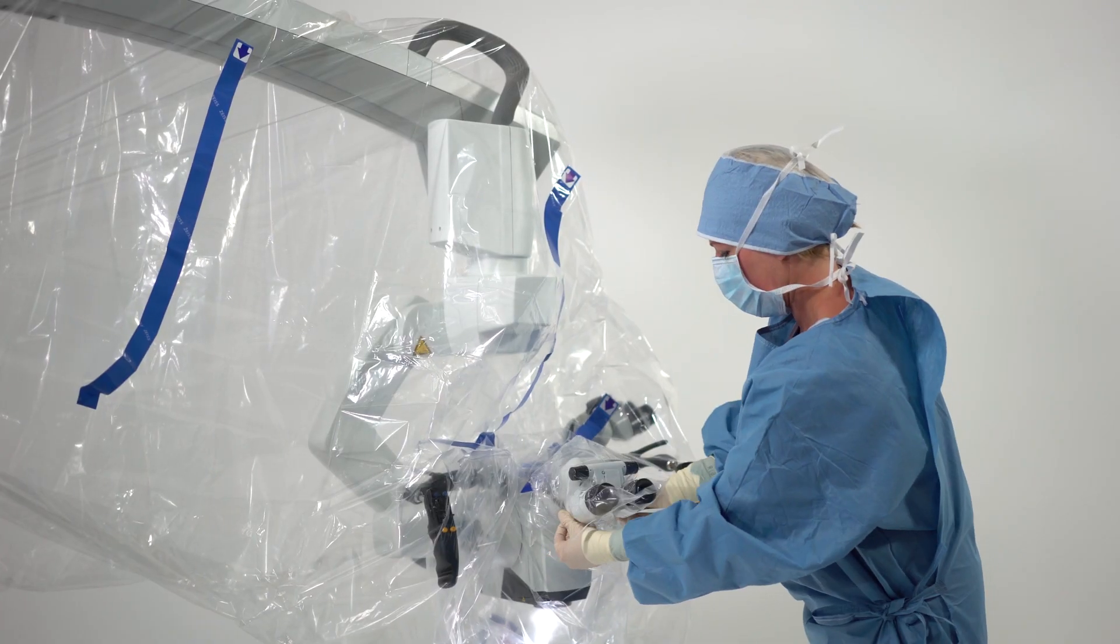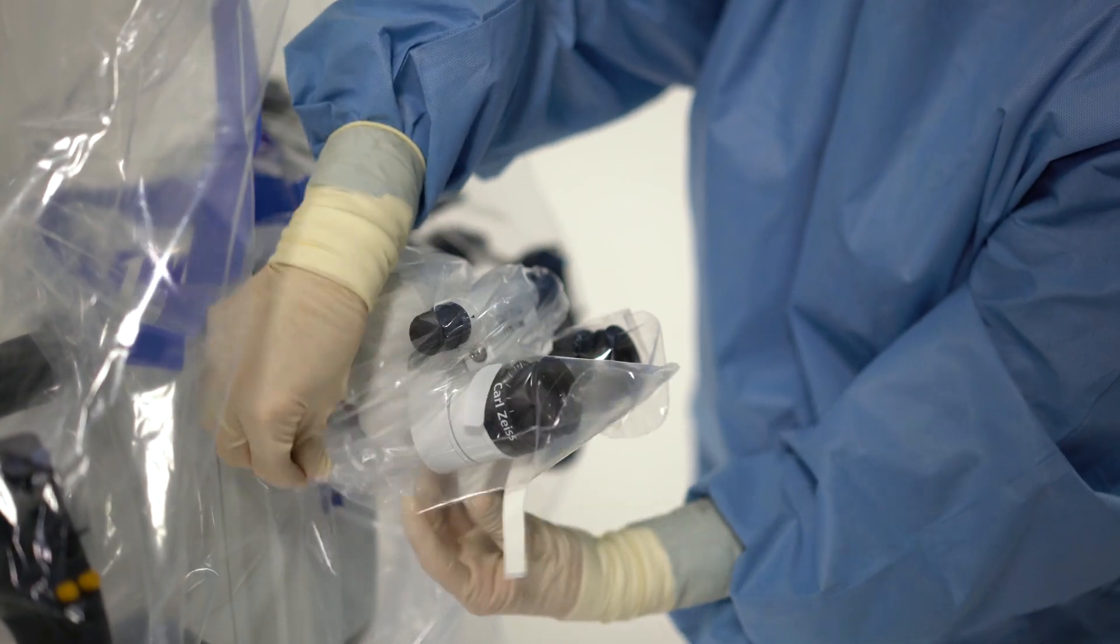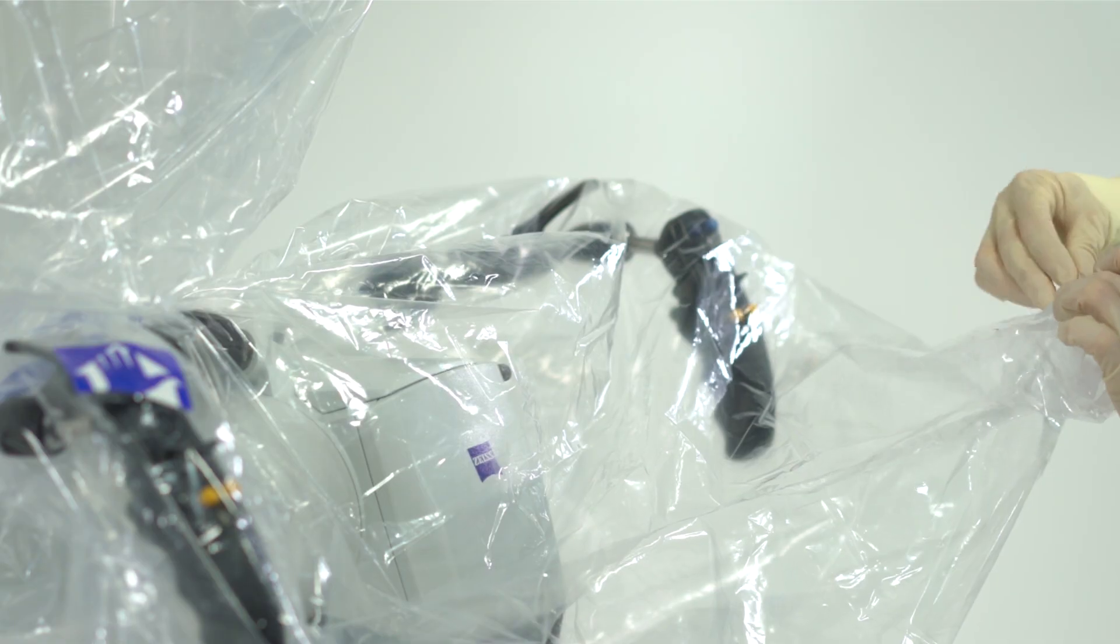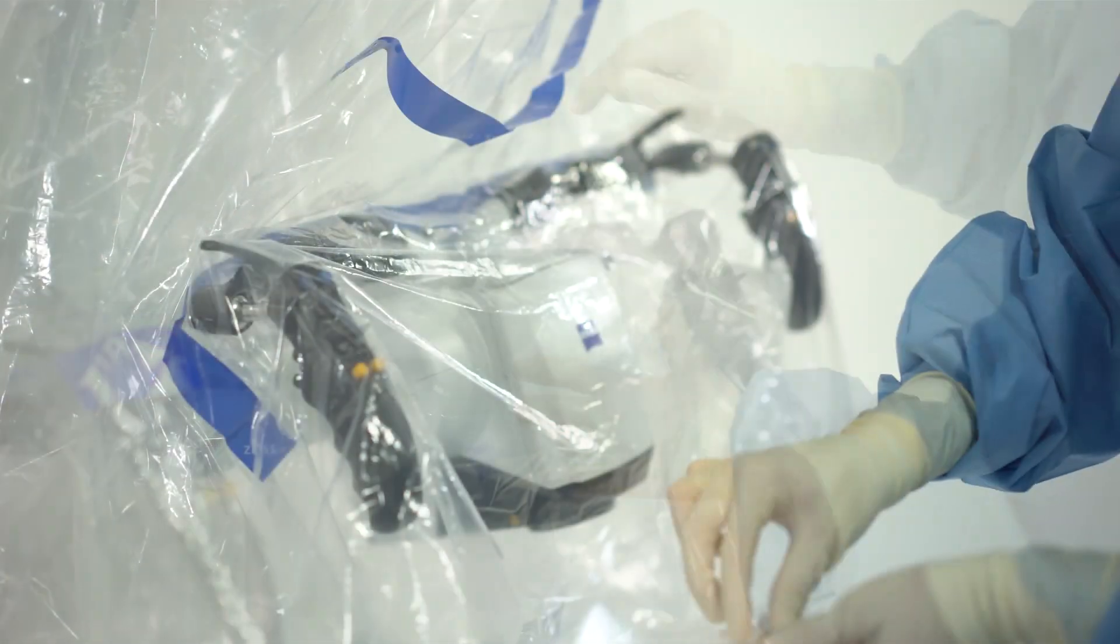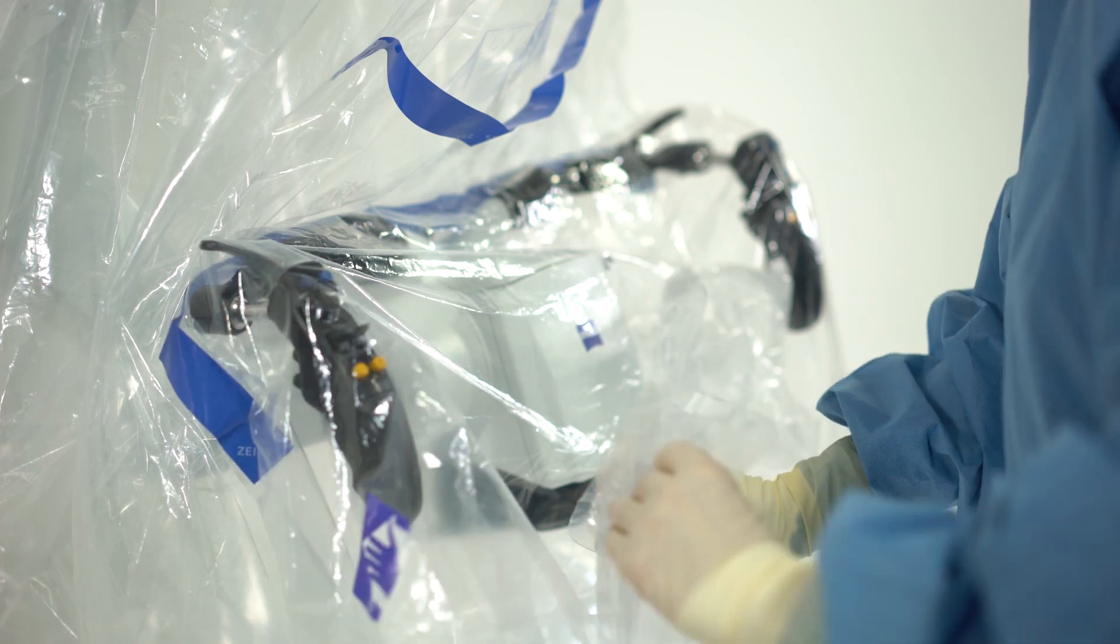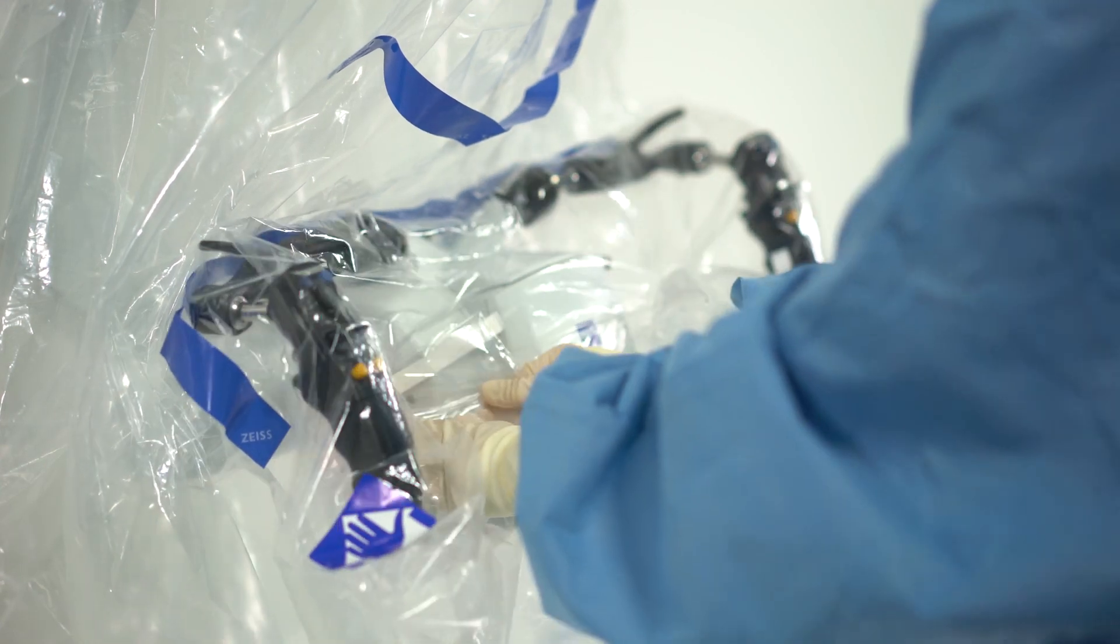Cover the oculars with the drape and secure the drape with the white hook and loop fasteners. When working digitally, stick any excess material back to the drape as no ocular draping is required. Secure the rest of the drape.